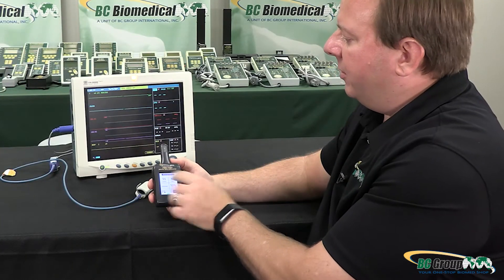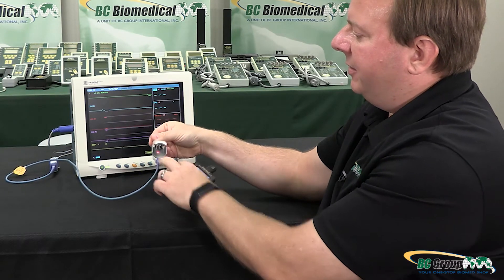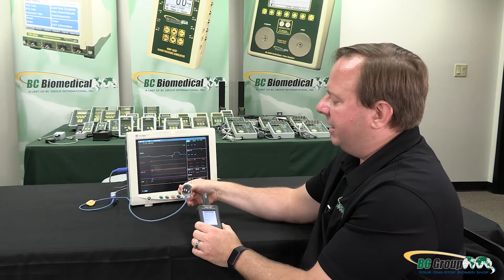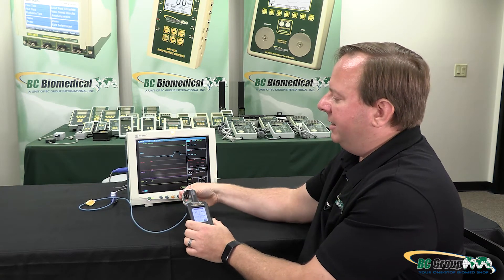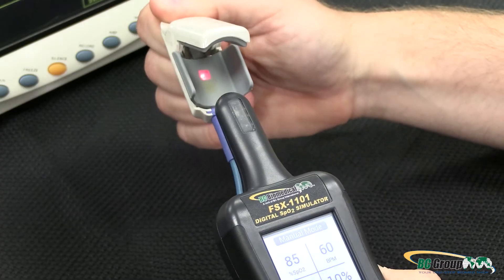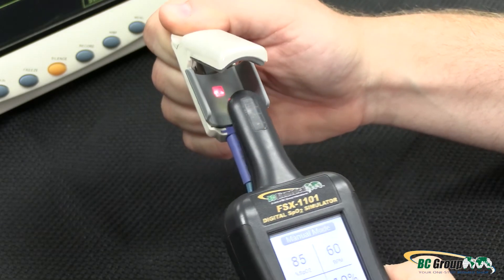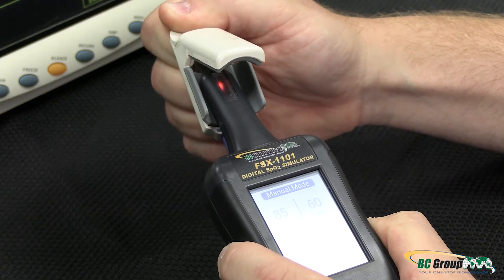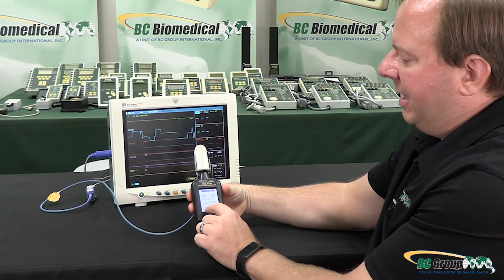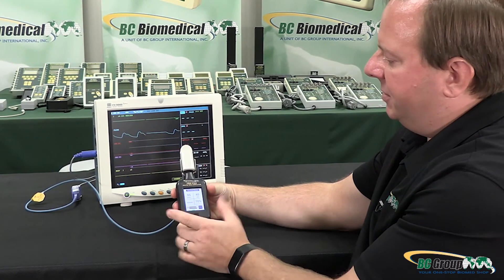Now we're going to connect our monitor. On the finger cuff we'll see one side with the red LED and the other side has the receivers. The red LEDs need to be on the bottom of the FSX 1101. As I slide this over the end of the finger I'll note there's a red LED output on top of our unit. As I slide this on I can see when that red LED becomes lit, and now I can see my red and infrared signal strength looks good.